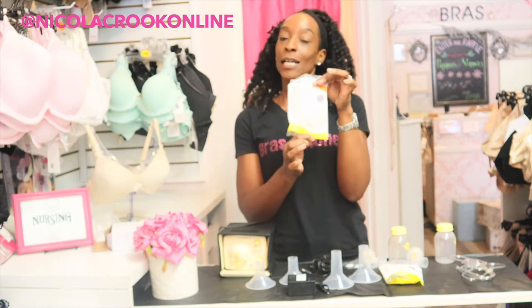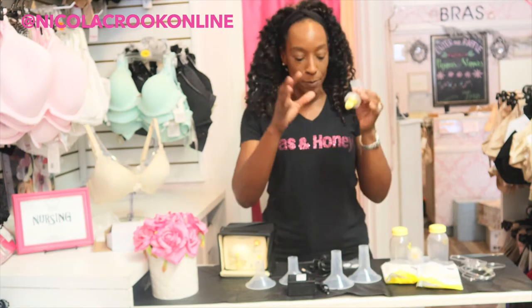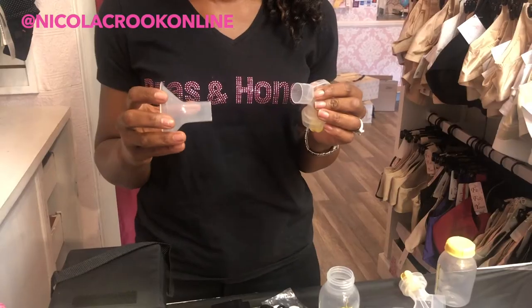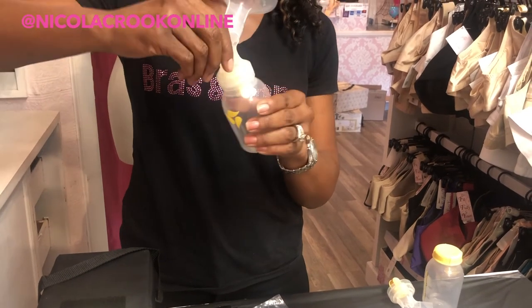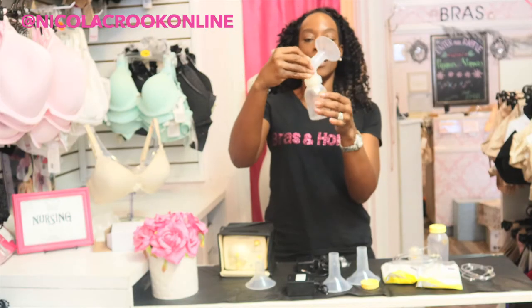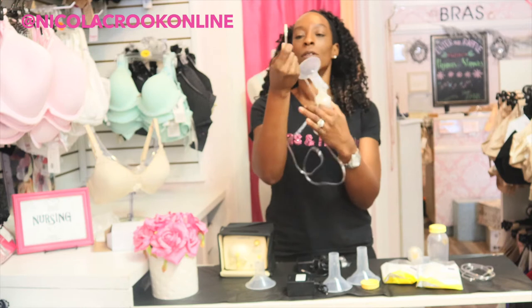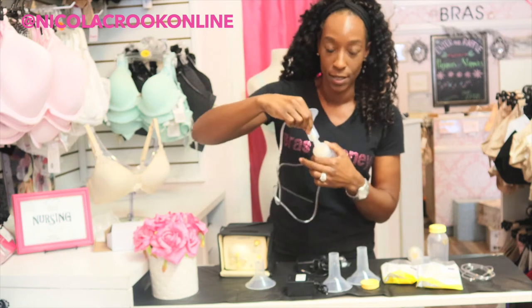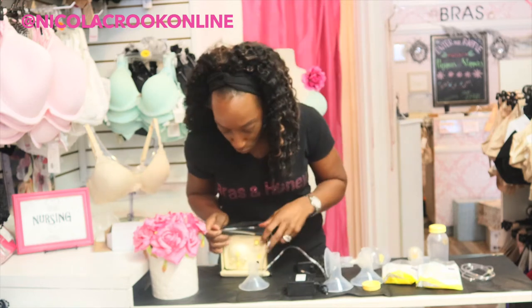They've also as a courtesy given you a couple of free samples of the disposable nursing pads, which you'll need because sometimes your milk will leak whilst you're out and about. To get your breast pump up and running for the first time, take your connector and your breast shield and attach them together. Then take your little bottle with the cap, screw the connector into the bottle, take your tubing — one end has a little yellow end and one does not — the yellow end goes into the connector at the top of the bottle and the other end goes into the actual pump.